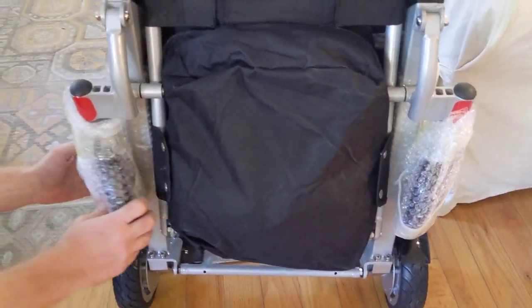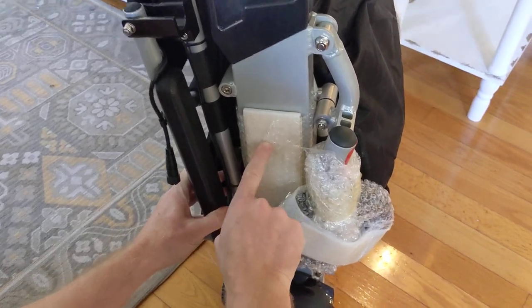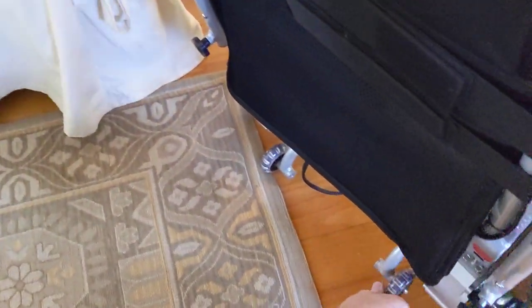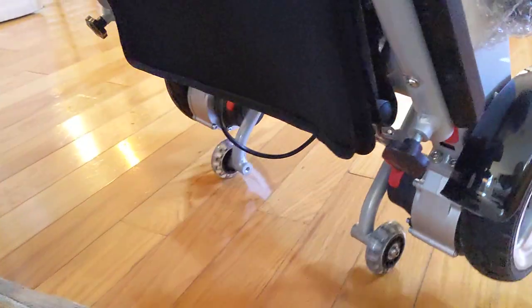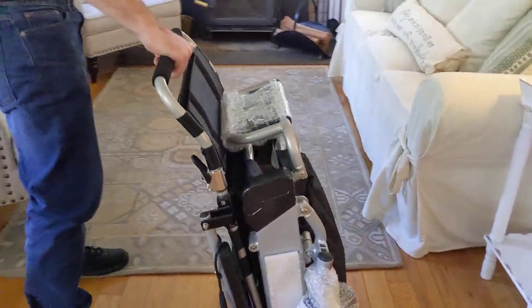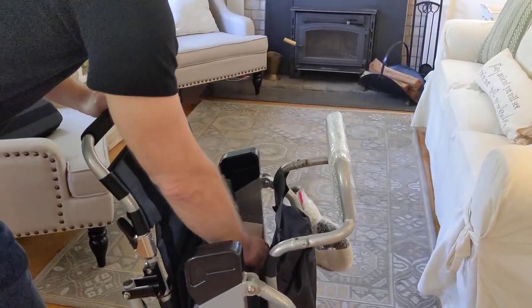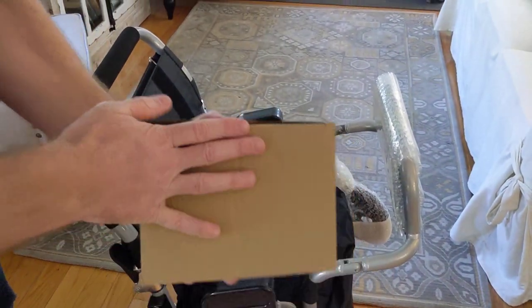Now that we have this paired out a little bit, let's take a look at this chair. You can see they've packed it beautifully — the casters are packaged very well, and the side where you have the actual Airhawk is packaged very well. The way to unfold this chair: I'm going to snap this back part up. We've got the kickstand wheels, which are wonderful because I can pull this device right behind me — very simple. The Airhawk itself without any batteries weighs just 41 pounds.